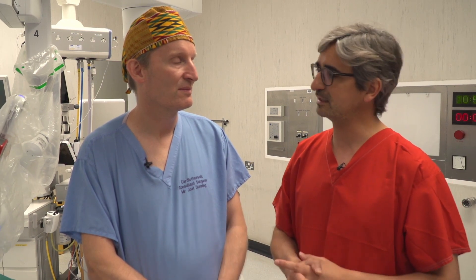During the pandemic, I had more time to think. I looked at the robot and said, I think it is possible to adjust the arms through two holes. I started with two holes after talking to my colleagues from Pugman Hospital. We decided to start with biportal robot, cancelling one arm and using three arms. We did two or three lobectomies using two ports — a utility incision with an additional hole in the upper part, left and right hand in the lower part. And we saw that it worked very well.